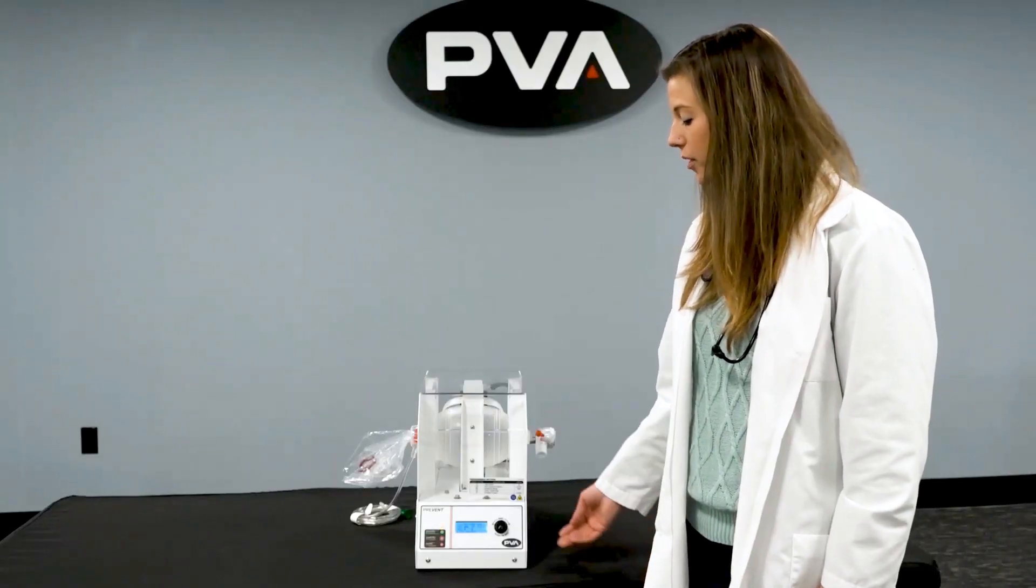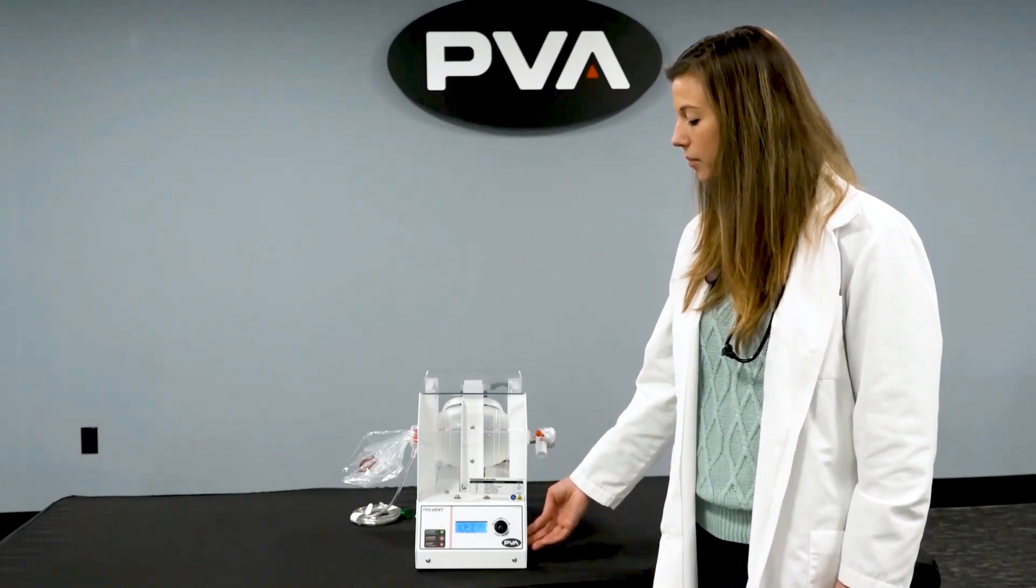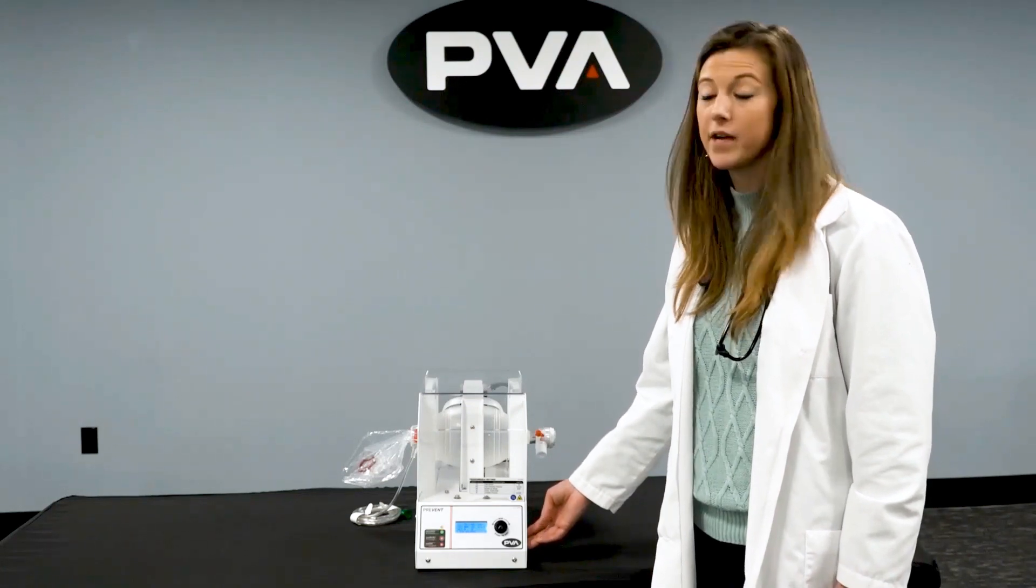Prevent is equipped with three AAA batteries and a UPS battery to ensure the machine will continue to operate for a period of time in the event there is power failure.